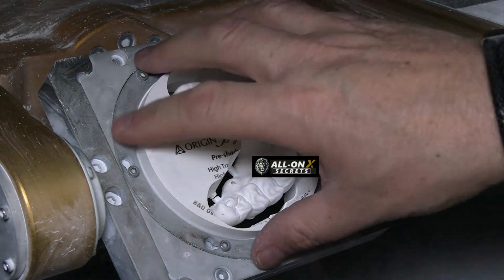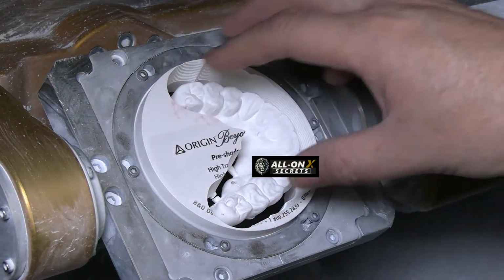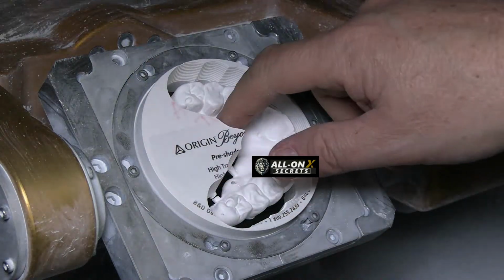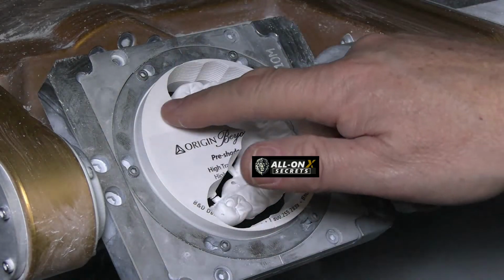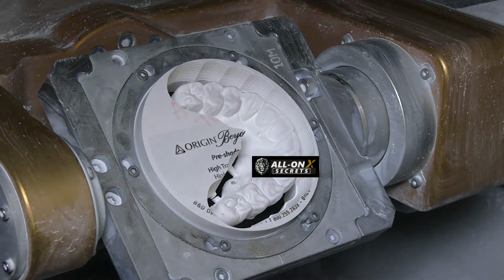All this is gone. Now, if I can take this out, and that's great. I can take this out and then take it off of the puck, or I can take it out now. I can cut this out. I'm going to cut it out now. In the case that I wanted to use this, it's already set, ready to go. And so I'll show you how I do that.